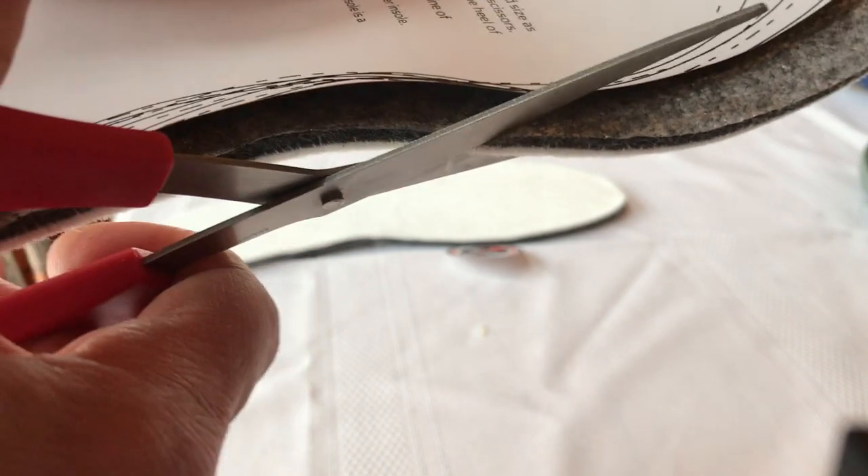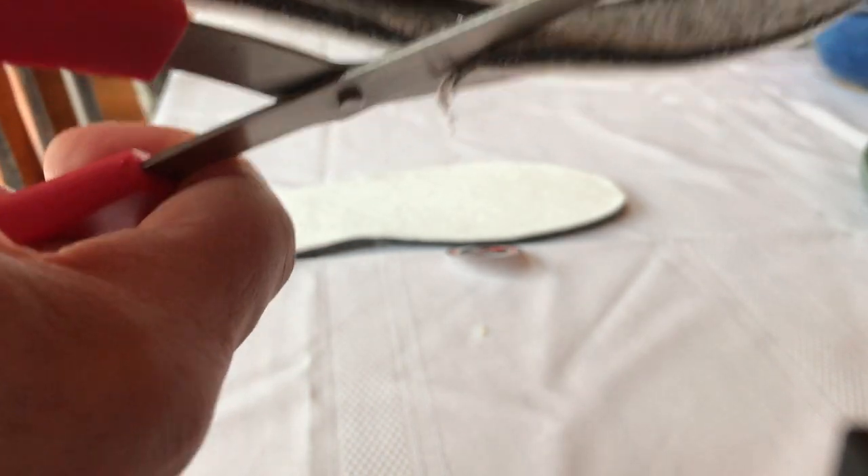That's because you simply drop it in the shoe. If you use a full length insert and you're moving it from shoe to shoe, you're going to have to cut that top cover to fit the first pair of shoes. And then when you move it into the second pair of shoes, it's not going to fit very well. Your toes might overhang, or maybe the side of the insert is too narrow and you feel the edge.